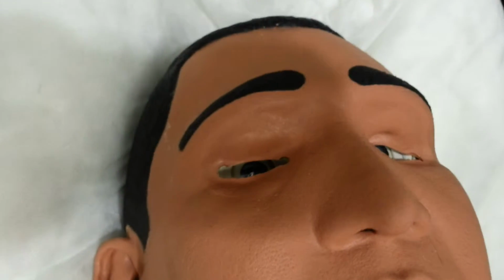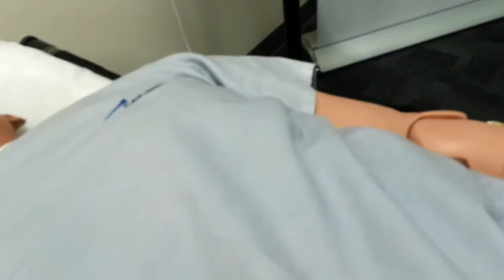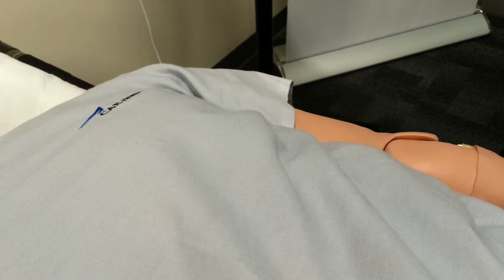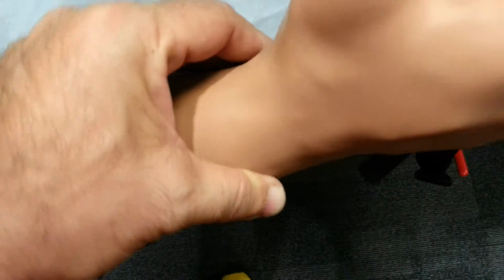So Caesar, for example, the military use it. They'll have a scenario in a mock military training village where an IED has gone off. You'll have Caesar lying in the dirt, screaming for a medic, bleeding profusely from his leg or his arm. We have special effects kits that clients use to dress them up to look like different scenarios. But you can have the instructor hiding 50 feet away behind a camouflage blind. He can have a little monitor, we can have a remote camera watching what's happening. They don't know, well, they assume probably somebody's there, but they don't directly see him. He can be seeing all the outputs. He can change this on the fly if he wants.